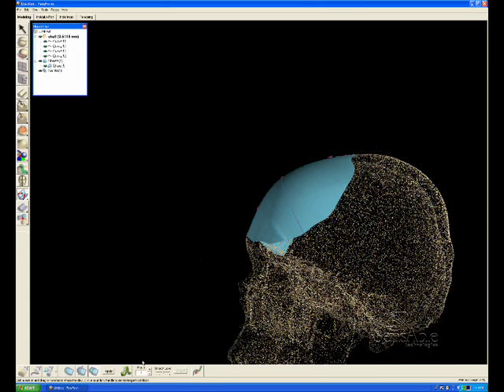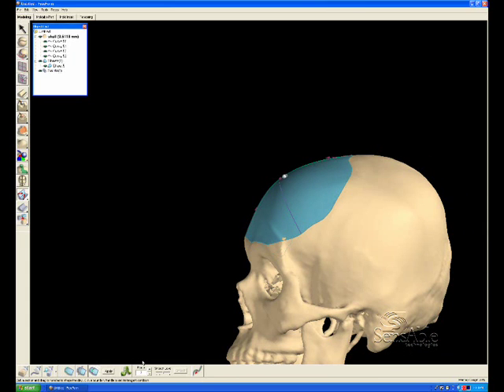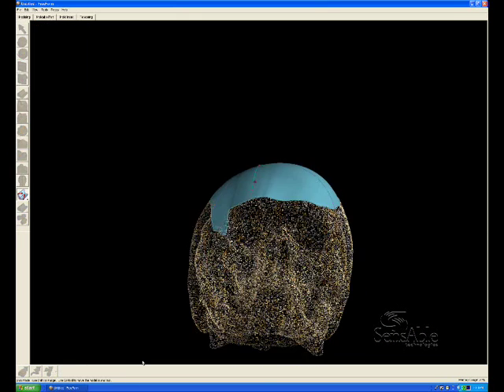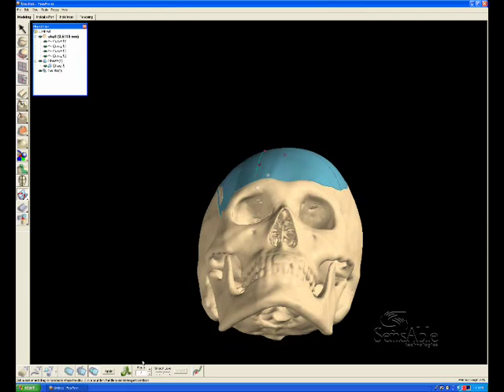That's a visual cue that you're tangent with the surrounding area of geometry. And that is the reason that the curves were drawn offset from the beginning of the defect area. We want to be tangent to the parts of the skull that are not affected by the wound.